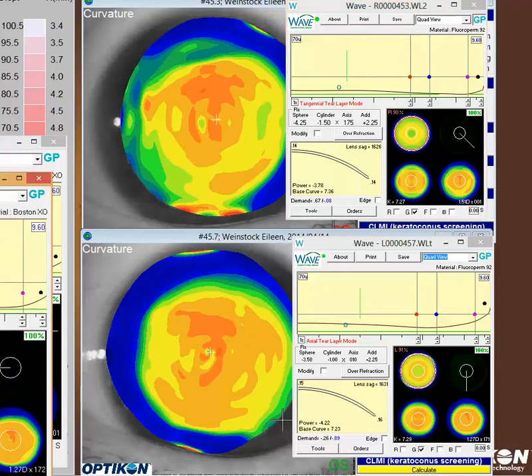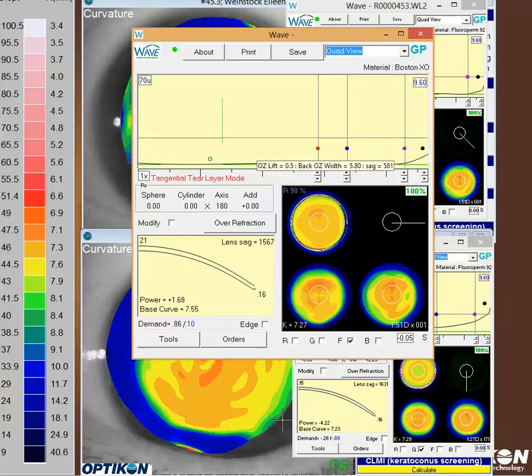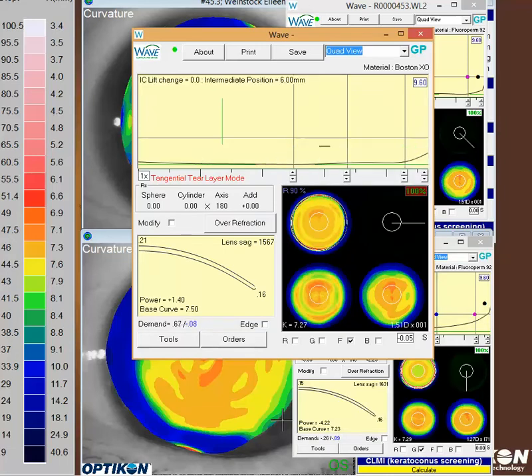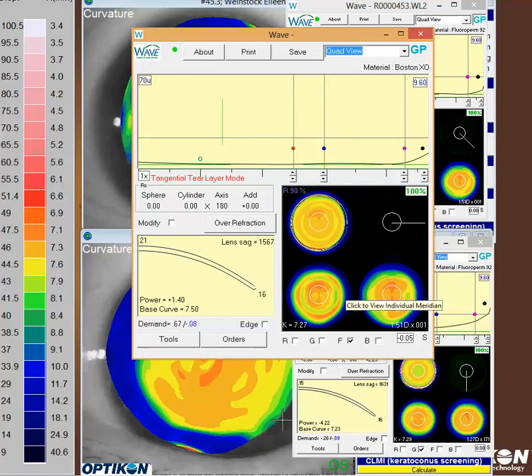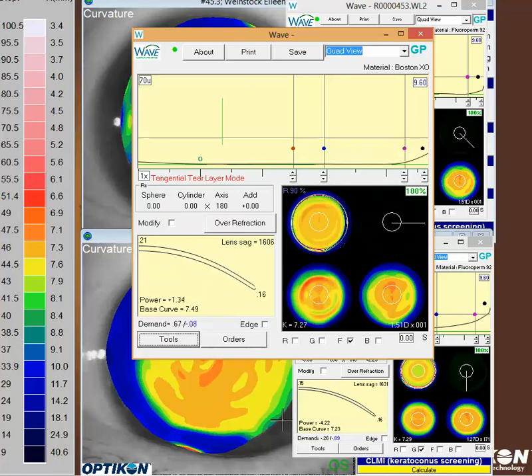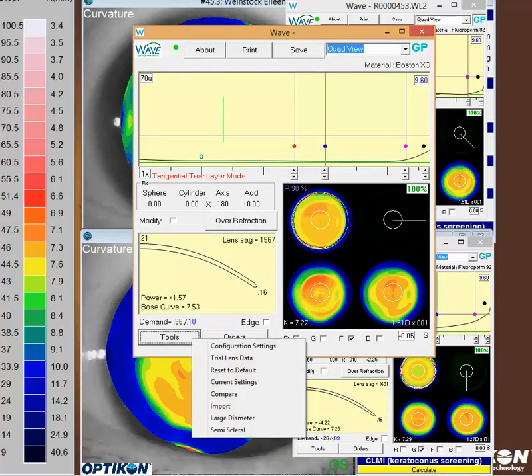I have a sample lens mocked up here for the right eye. I took the back surface zone — the back optical zone — and shrunk it up a little bit. In this particular design it's left about the same, but you can go a little smaller if you'd like, maybe down to about five or six. To try to really mimic this cornea, I set it to free form and let Wave design the lens. You'll see the back surface of the lens is starting to look a little closer to this topography. I'm going to put a little back surface asphericity in there and redesign again.